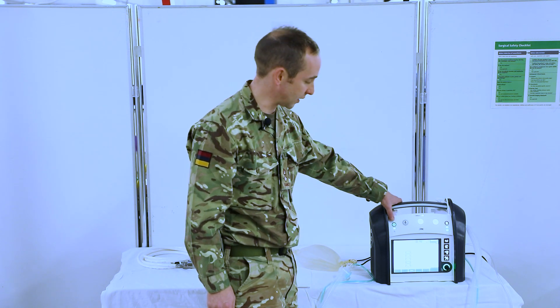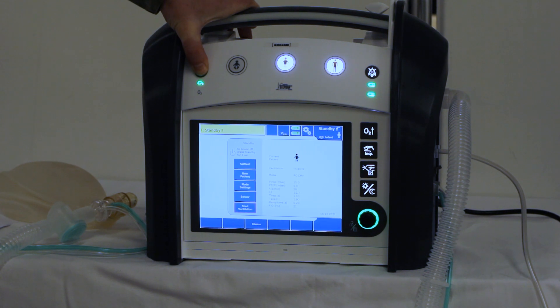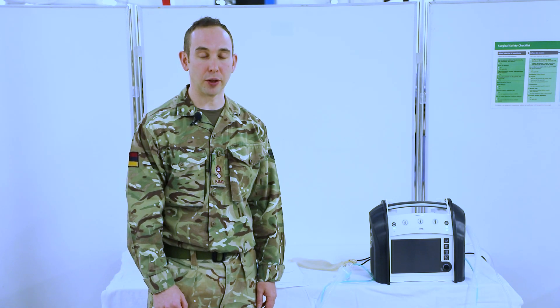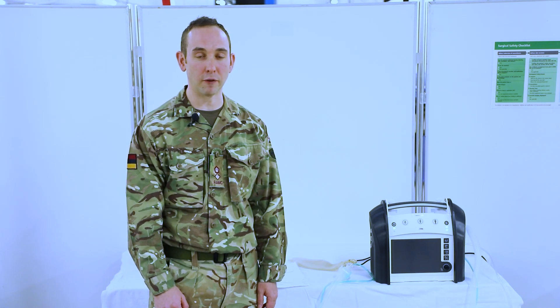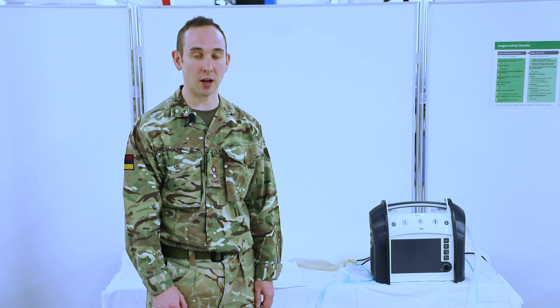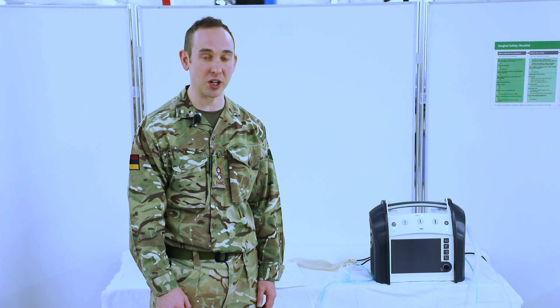At this stage, the 373 is therefore complete. We're going to press the power off button to turn the machine off. That is the end of the 373 video for the Eve TR. This video is to be used in conjunction with the other training videos for the Eve TR related to functional use of the machine itself.